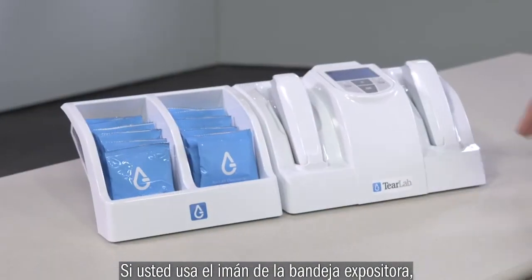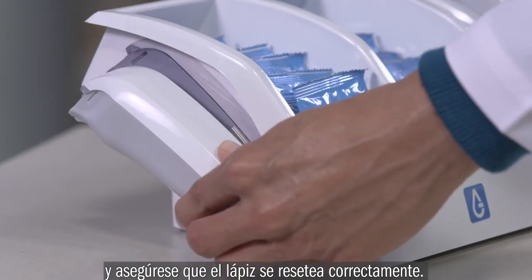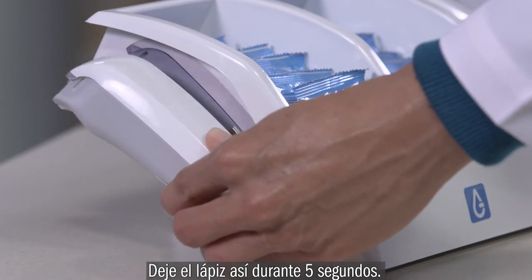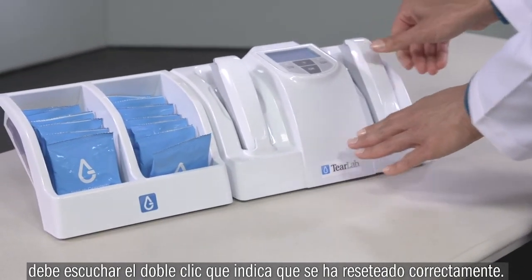If you use the test card tray magnet, orienting the pin against the magnet on the side of the test card tray will ensure that the pins are reset properly. Place the pin against the magnet for 5 seconds. When you remove the pin from the magnet, the pin has properly reset once you hear 2 clicks.